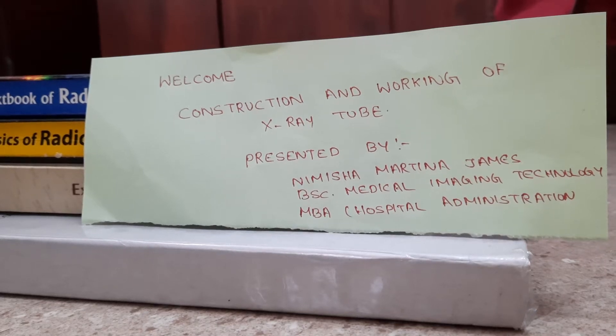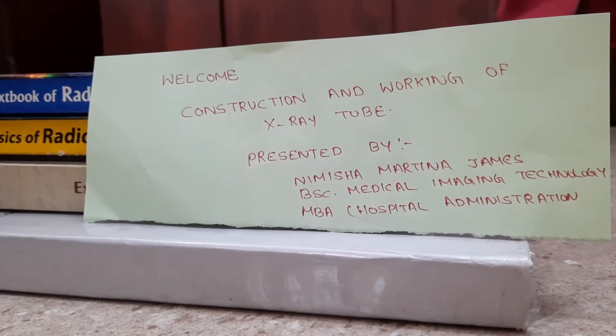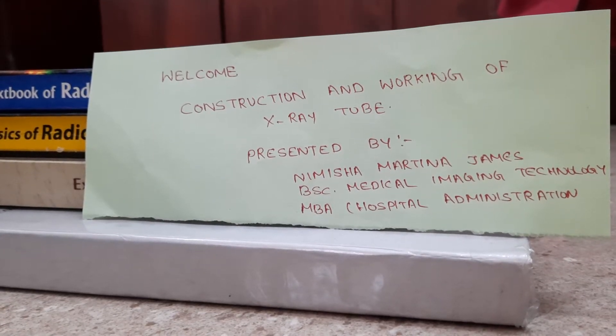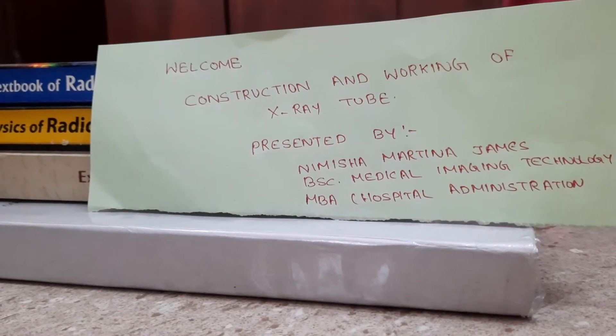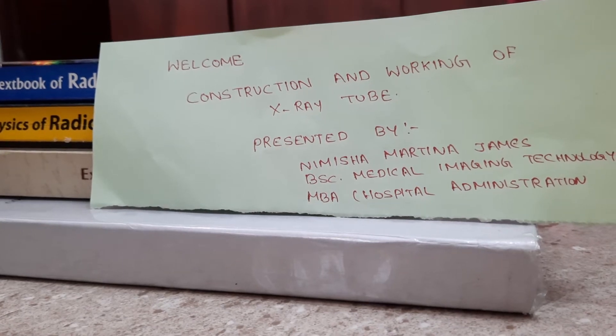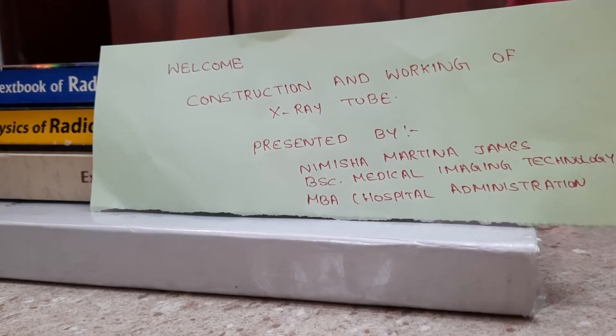Hi everyone, welcome to the video. Today we will be discussing the construction and working of the x-ray tube. In the previous video we learned what is thermionic emission and about atomic structure. Now we will learn about the parts of the x-ray tube and how an x-ray tube works in order to produce x-rays.